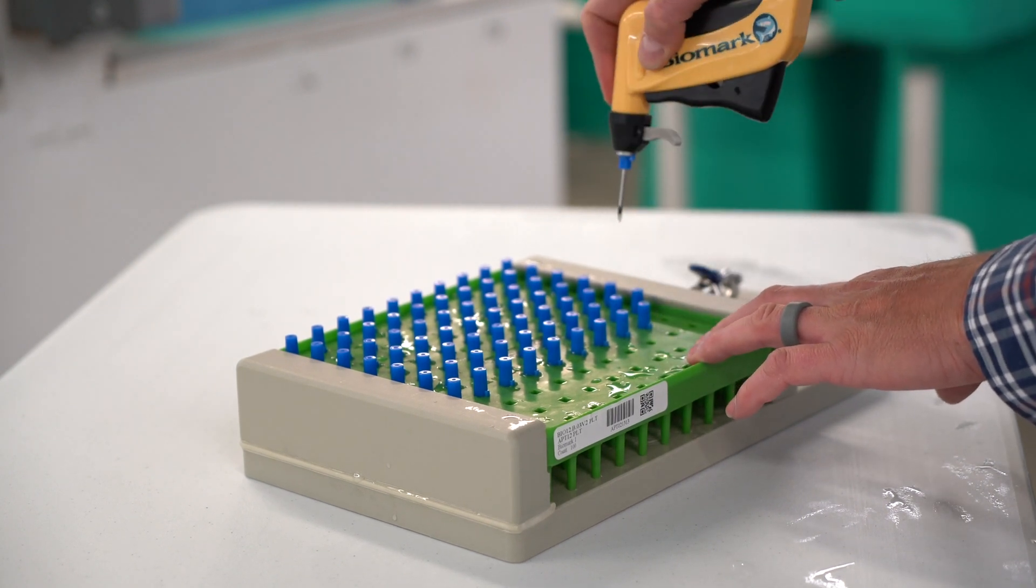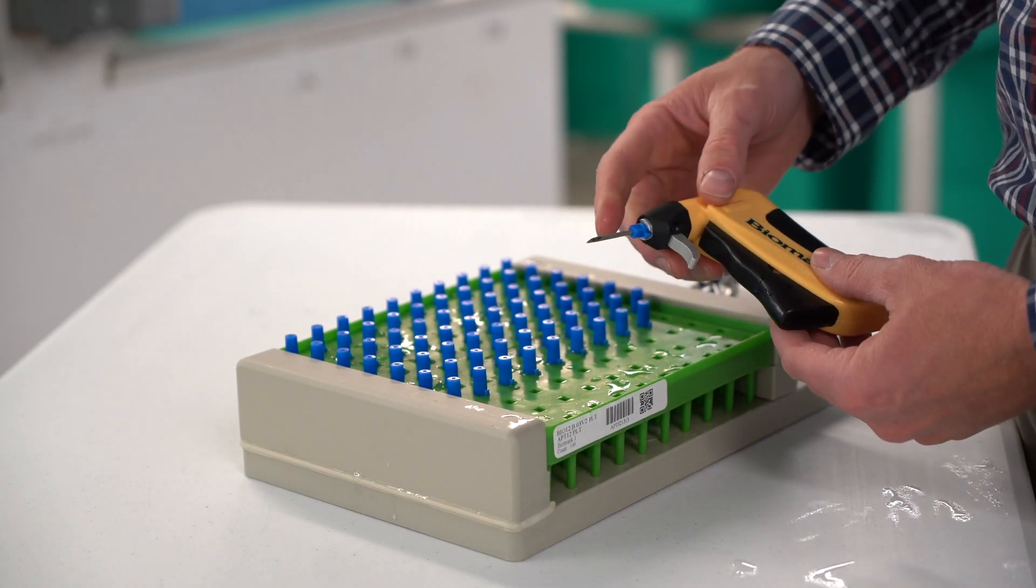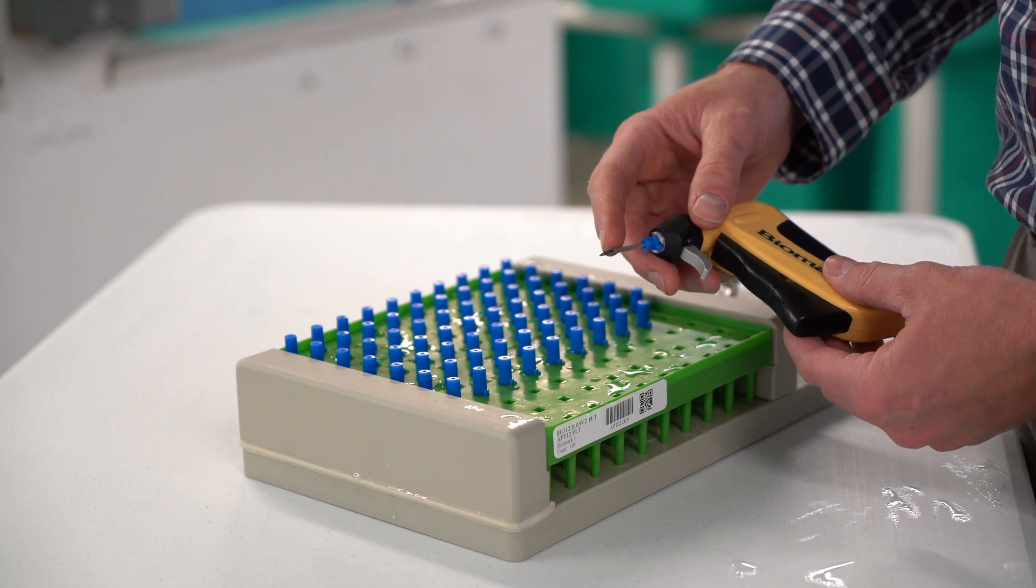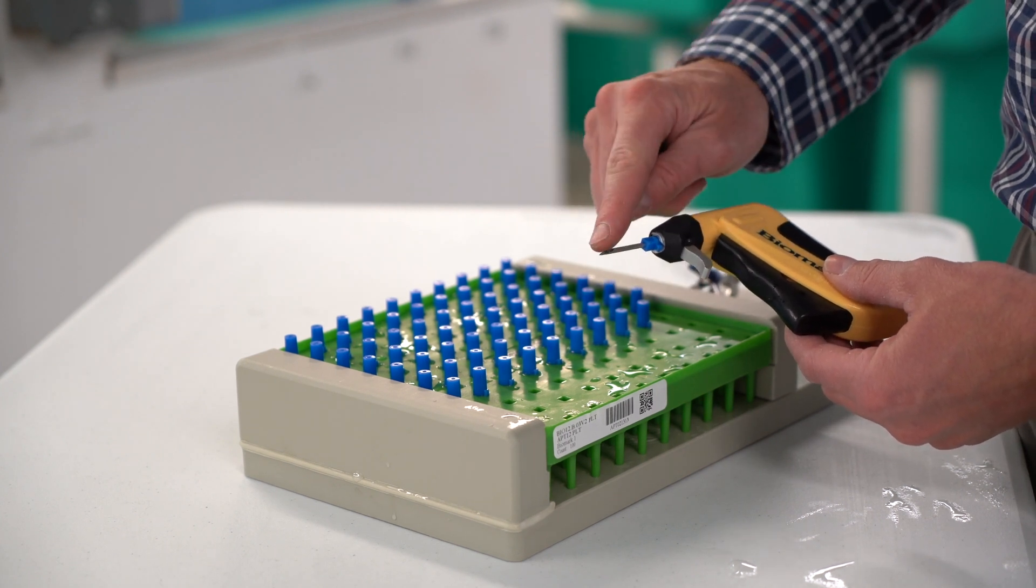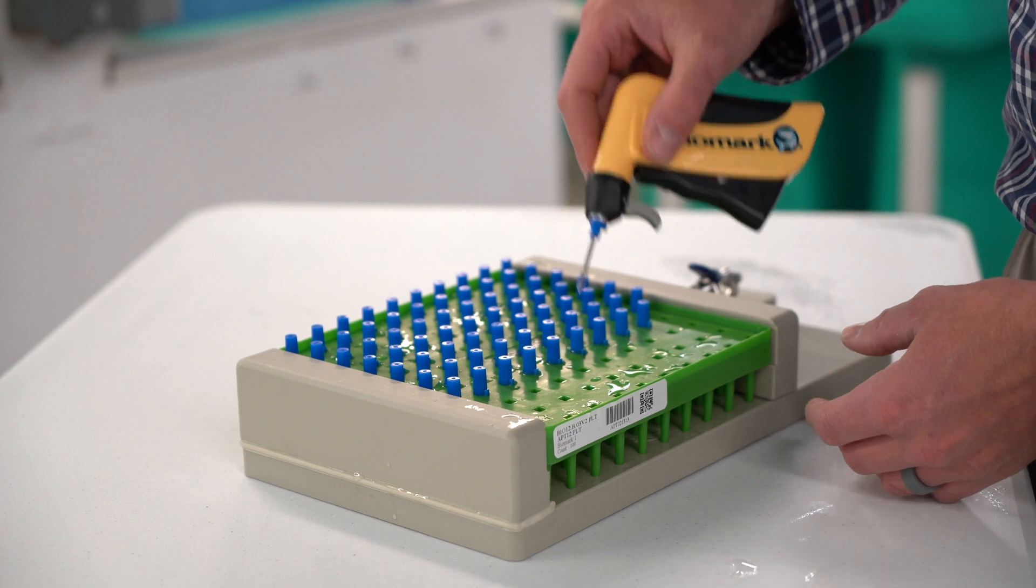The needles are pressure fit. Each needle includes a pit tag, internal pushrod, and small silicone bump. The small silicone bump prevents the tag from coming out of the needle prior to implanting.